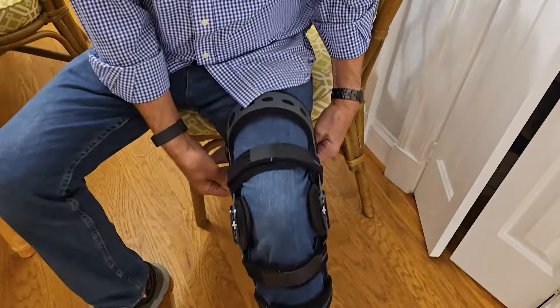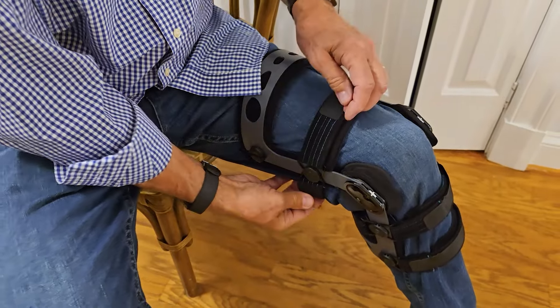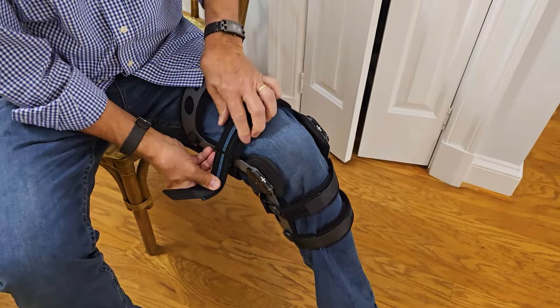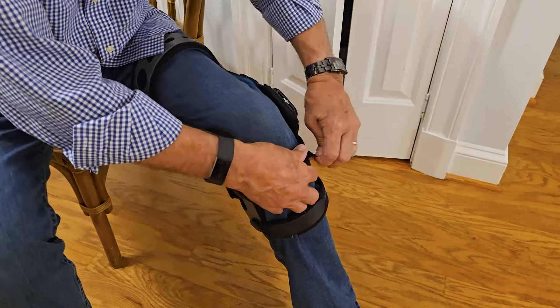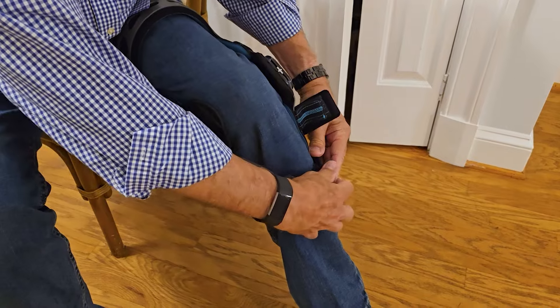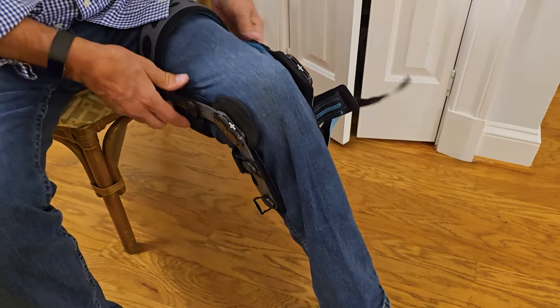It's made from a high-strength aluminum alloy, giving it a very strong frame that will be long-lasting. The individual straps and other pieces are also high-end and will last as well. I definitely recommend this if it's a product you might need — having it here in person, I was very impressed with the quality, and I hope that helps you make your decision.